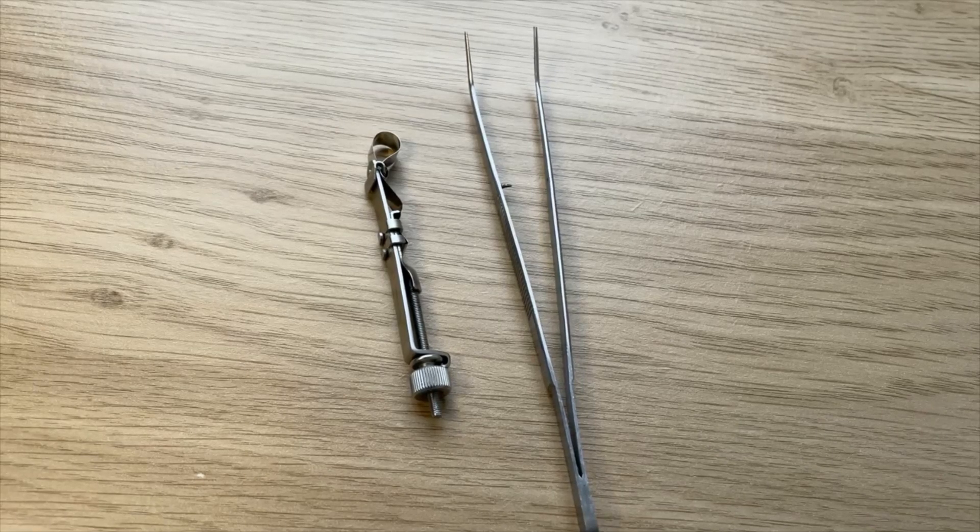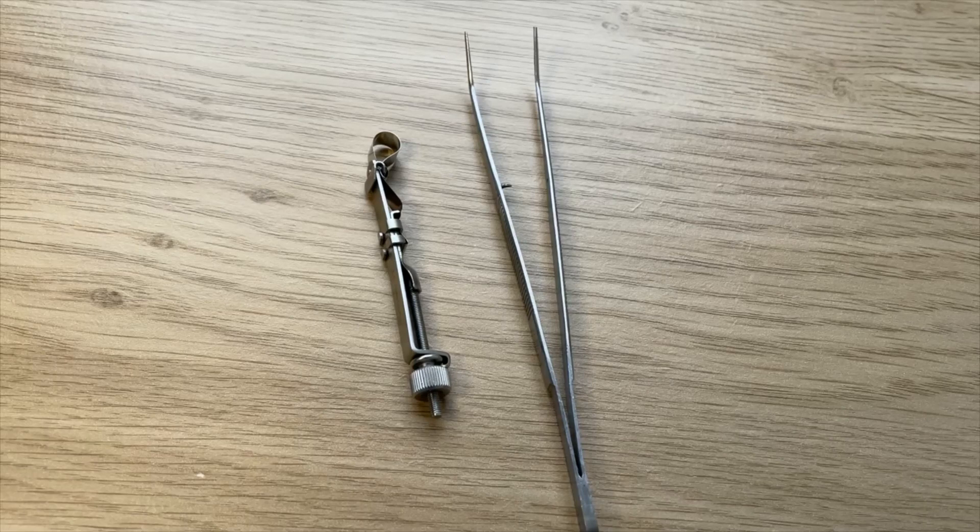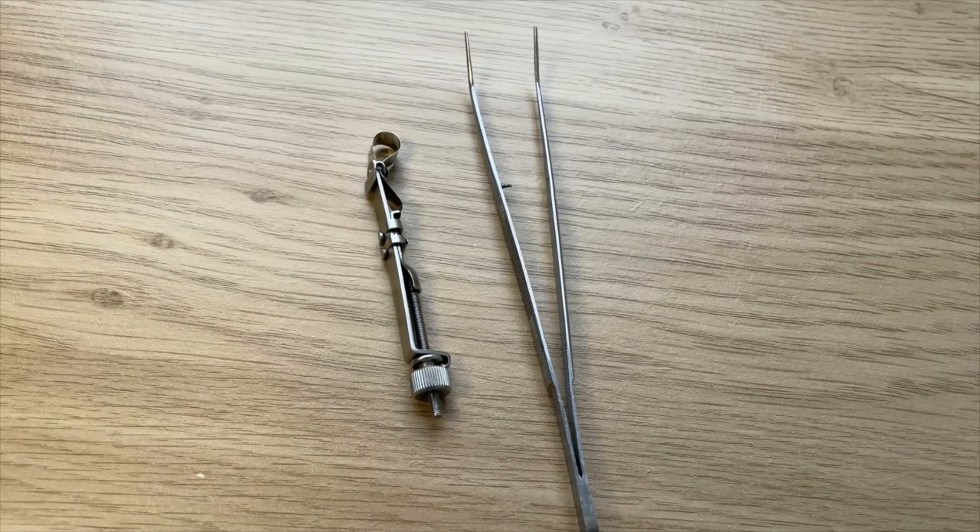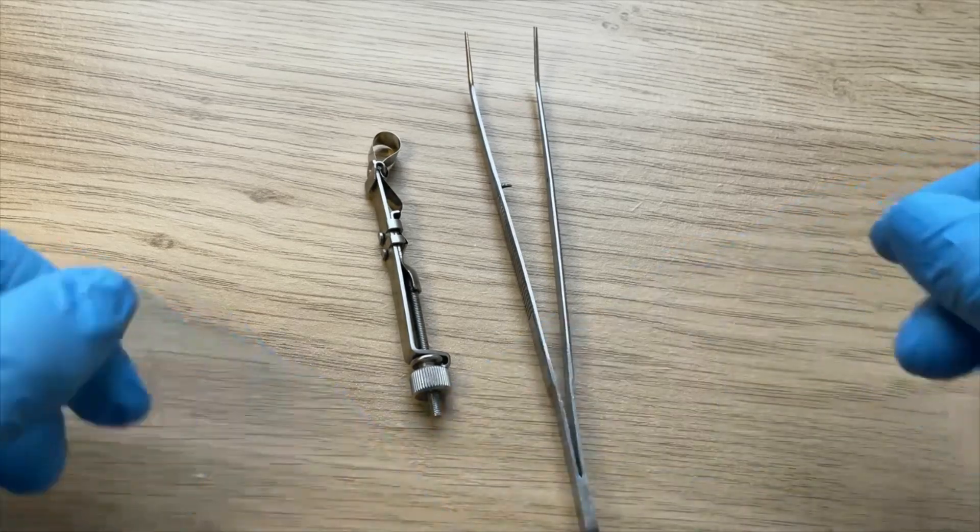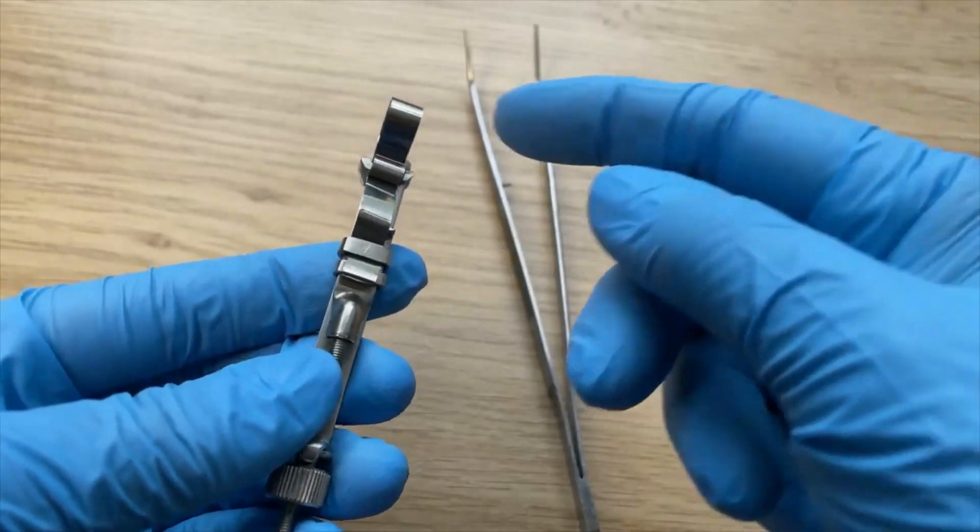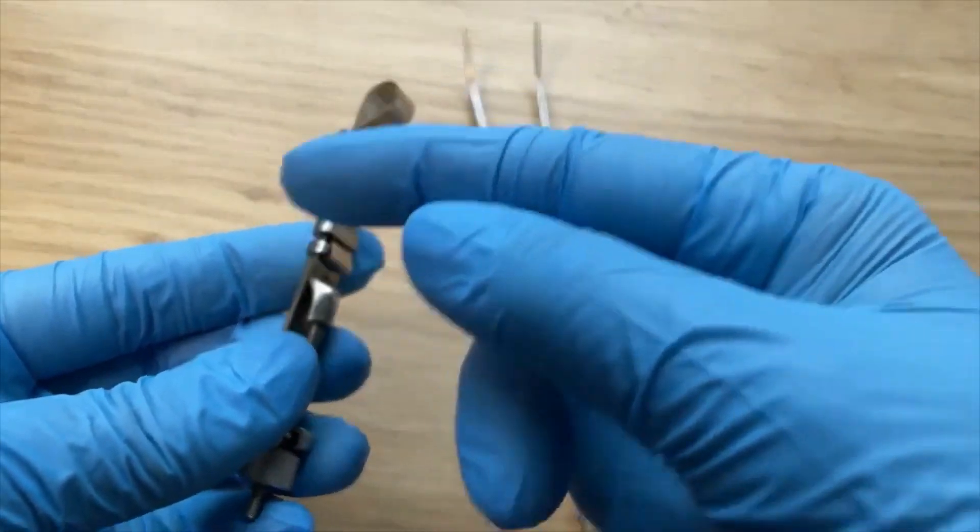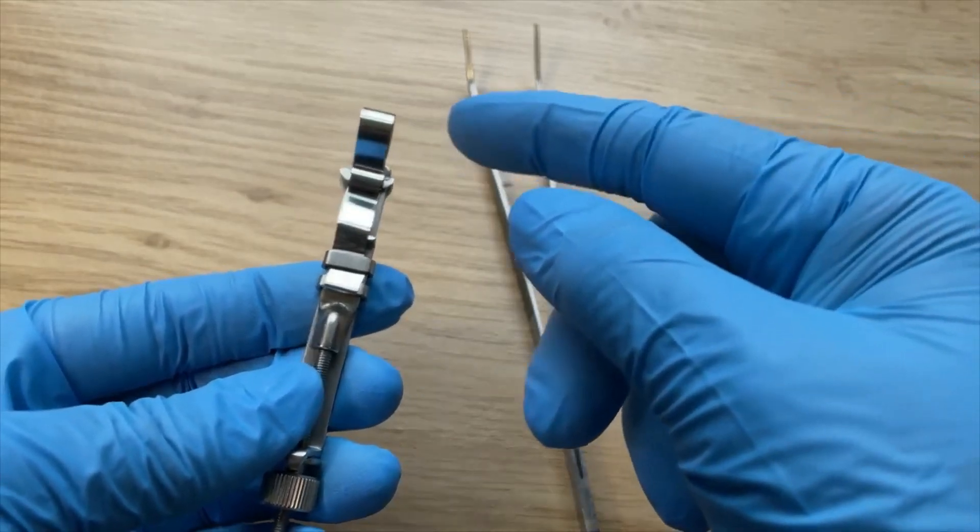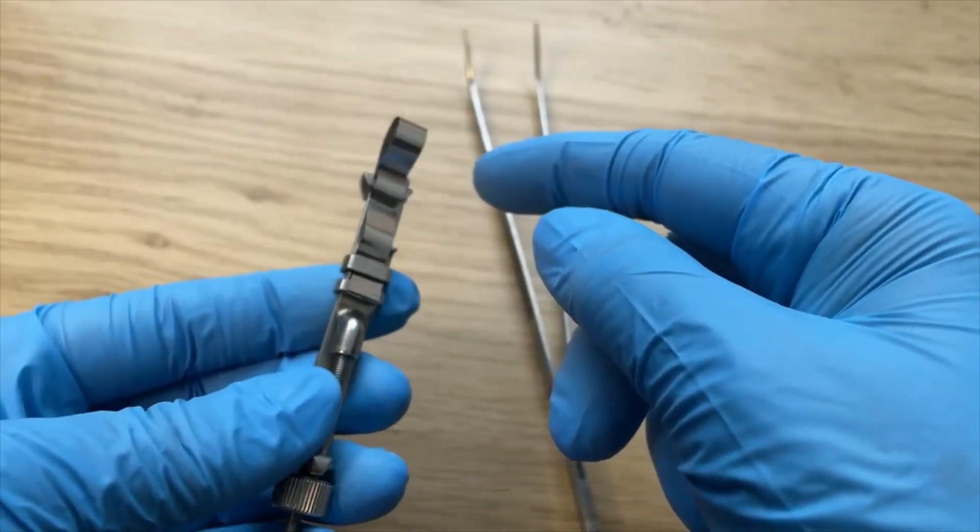Hi everyone, today I'm going to demonstrate how to remove a used band from a Siqveland retainer. In undoing a used band from the retainer, please don't use your fingers, especially if the band is stained with blood and saliva.